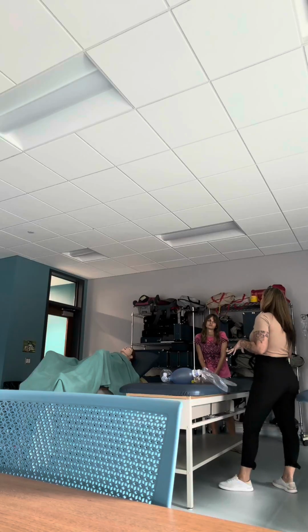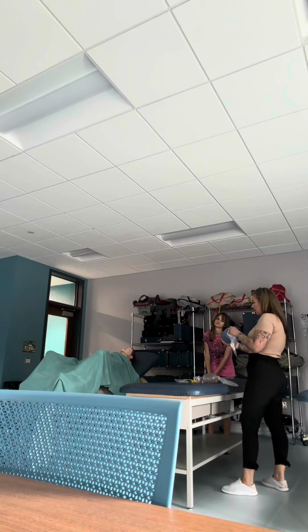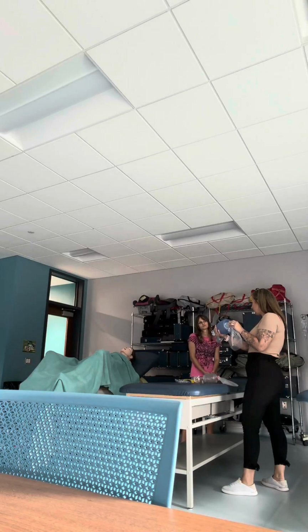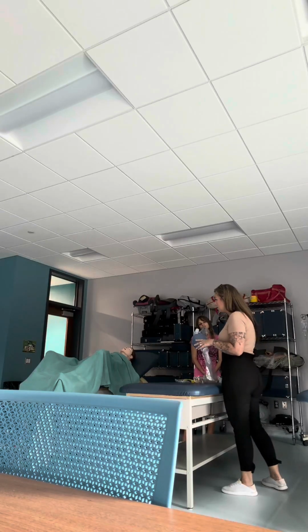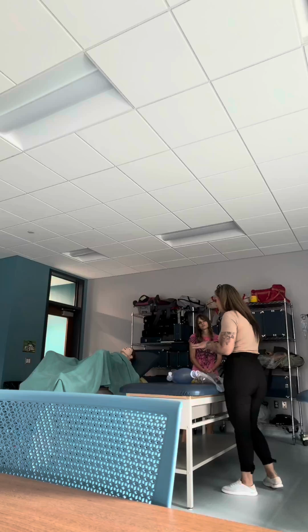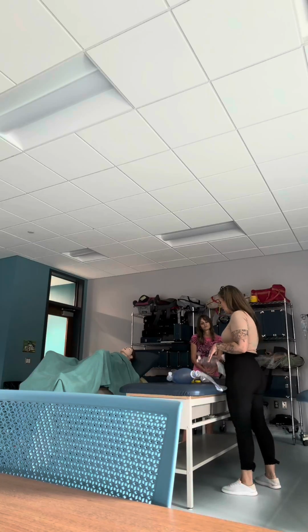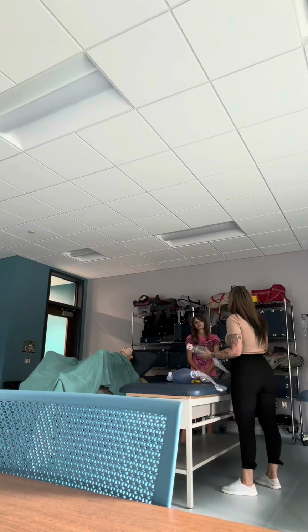There is another one that's a little newer on the market. It folds about in half, and it's a 3-in-1. It's an adult, pediatric, and infant BVM. So you have one BVM for every size patient. And as I stated, it's smaller so you don't overventilate your patient at once.